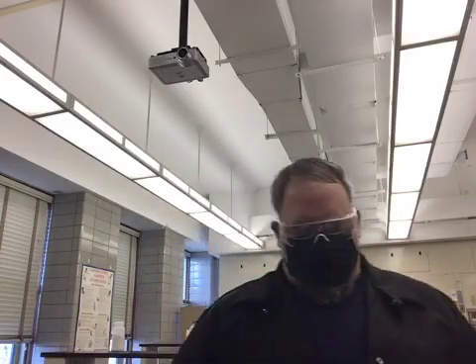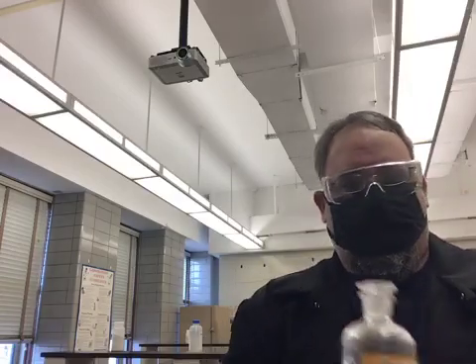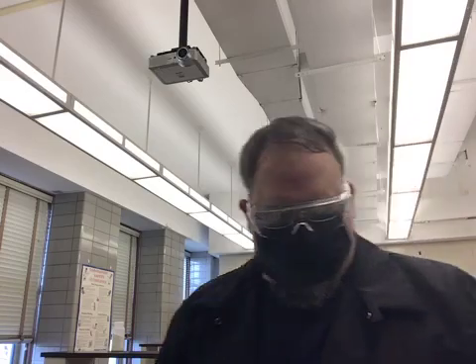All right, so in our last test, we're going to be testing the urine samples for the presence of albumin. The way that we're going to test for the presence of albumin is that I've taken some concentrated nitric acid, and of course I just took my gloves off, and I'll just very carefully and quickly hold the bottle up. Don't want to touch that or get that on your skin, that will burn.